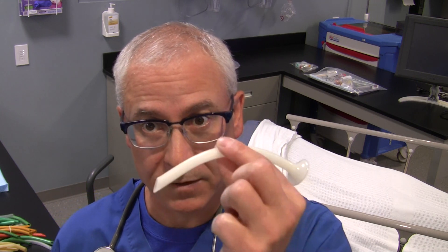So why would we want to use a nasopharyngeal airway? Well, these are used pretty much to alleviate obstruction that occurs due to some sort of soft tissue. The soft tissue that usually causes obstruction in the back of the pharynx is the tongue. When the patient loses consciousness or loses muscle tone, the tongue can tend to move backwards, or posteriorly, and that occludes the pharynx. If the pharynx is occluded, gas can't pass from the upper airway down to the lower airway. So by having the nasopharyngeal airway in place, that helps alleviate soft tissue obstruction.